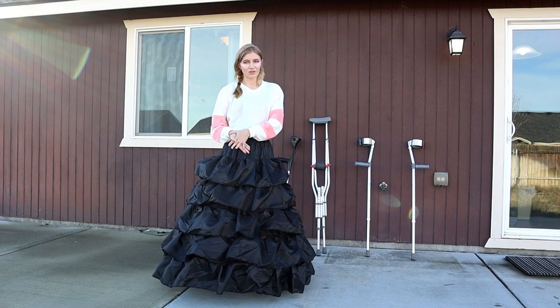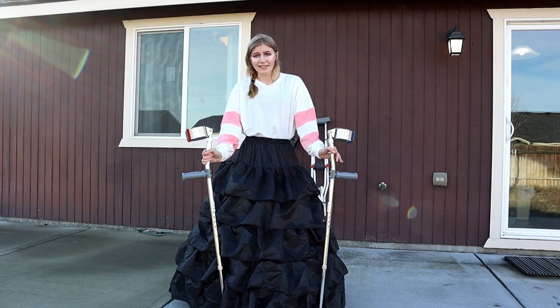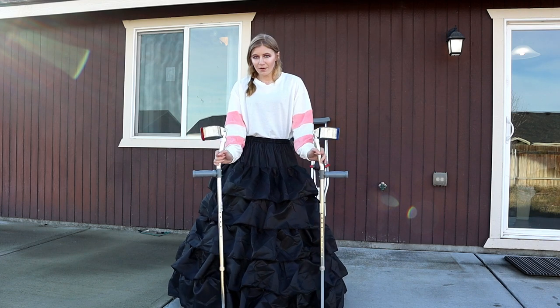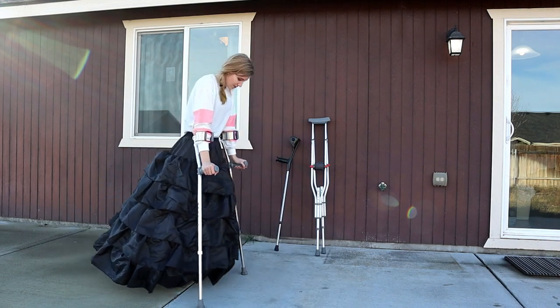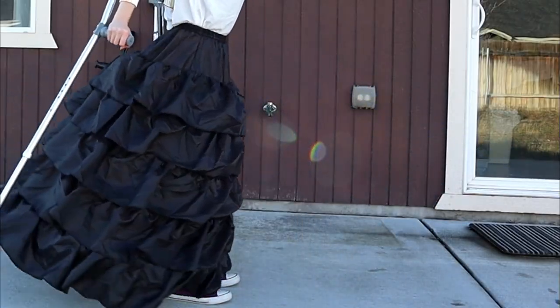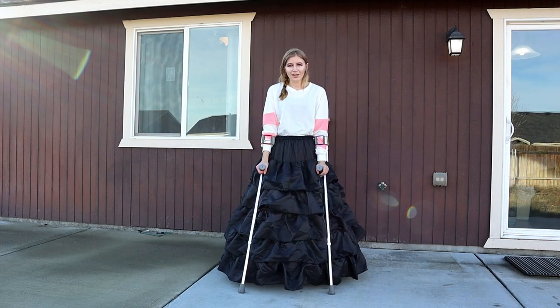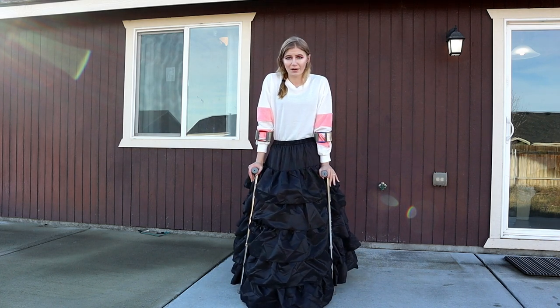Okay, now we get to the interesting part — let's test out the crutches. I use forearm crutches for every convention I attend. This just works the best for me. In a perfect world, I'd just use the forearm crutches, preferably both of them. Generally I have my crutches to the side of my feet, just wide enough that I won't kick them when I walk.